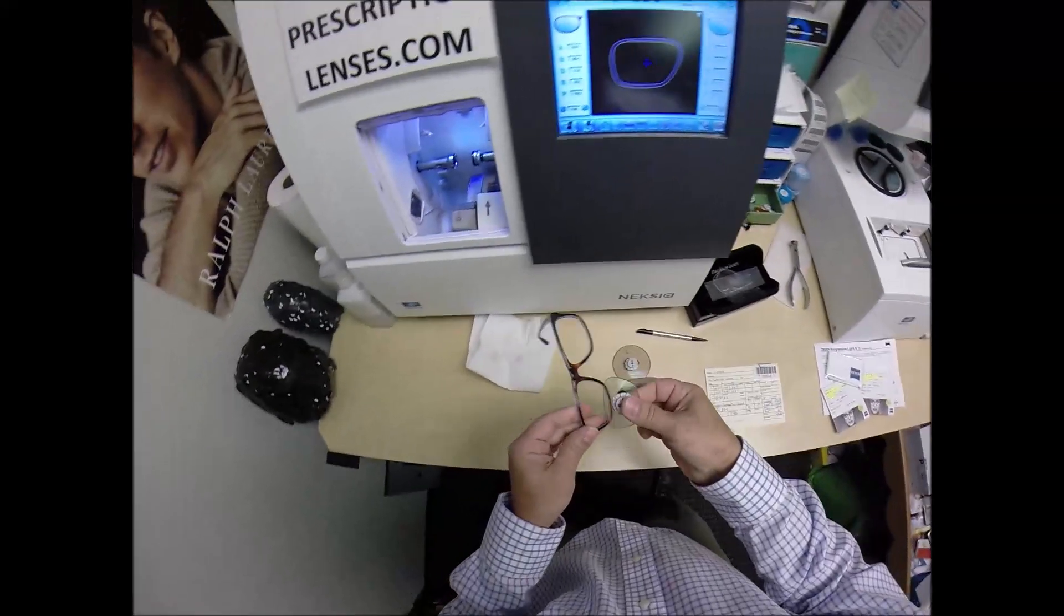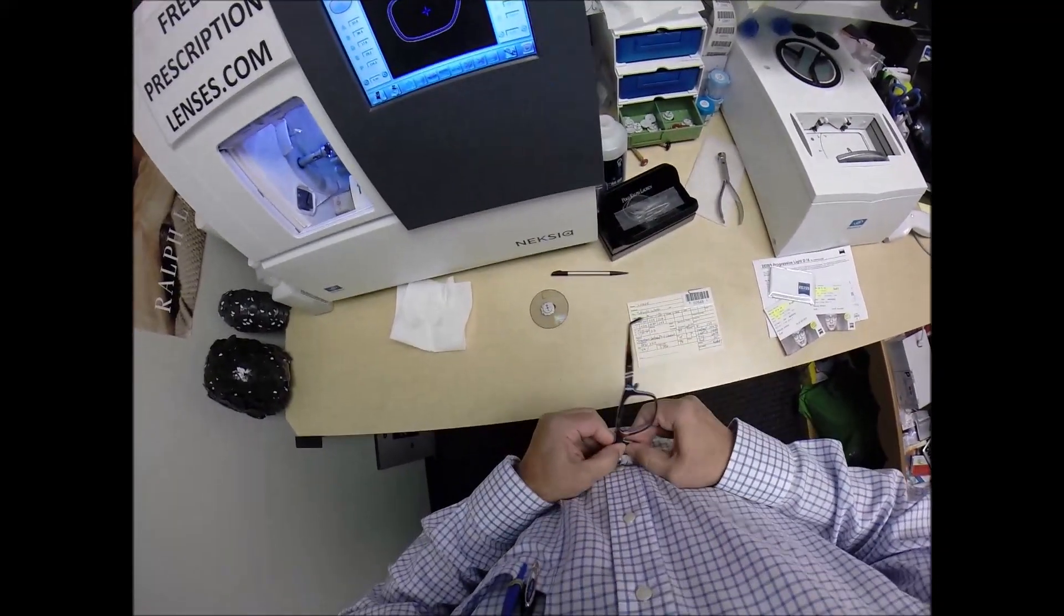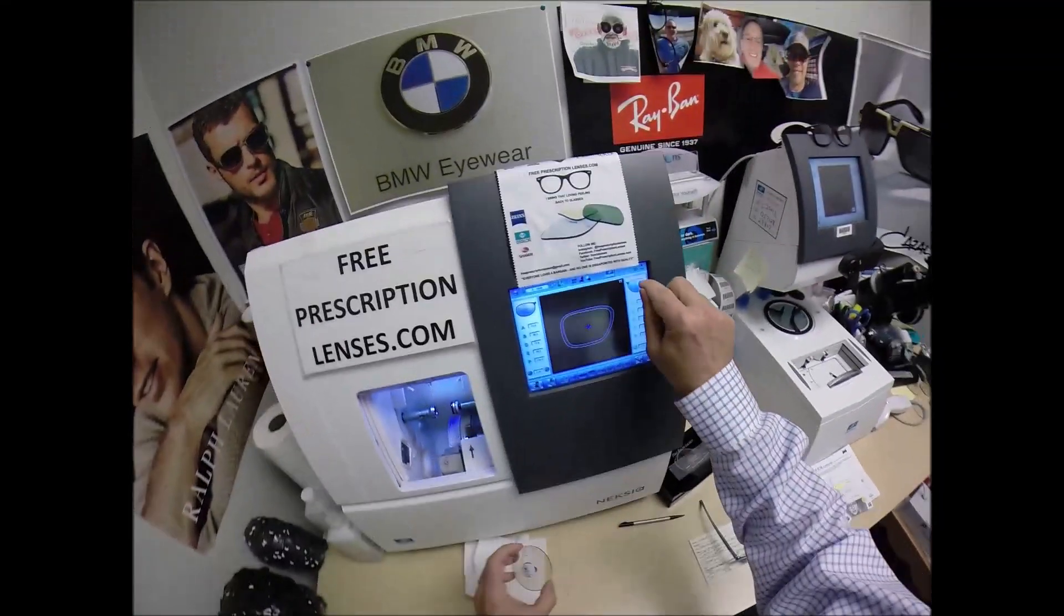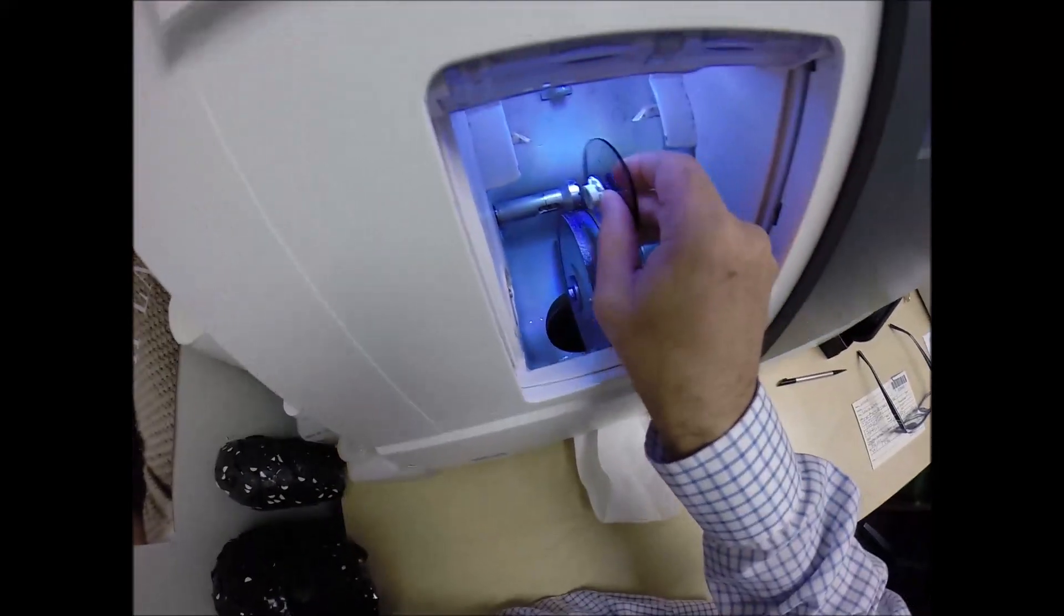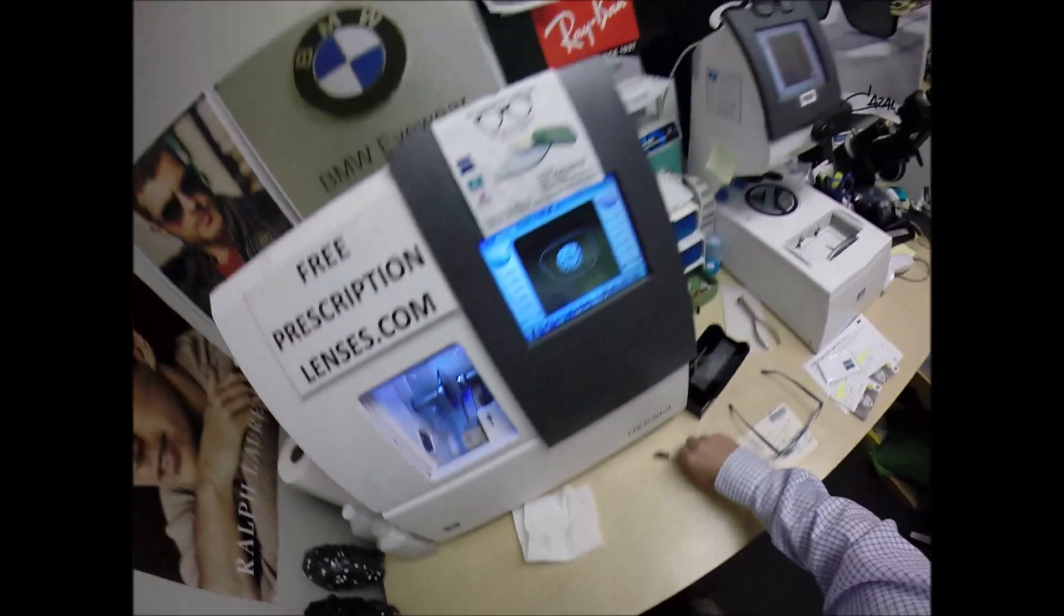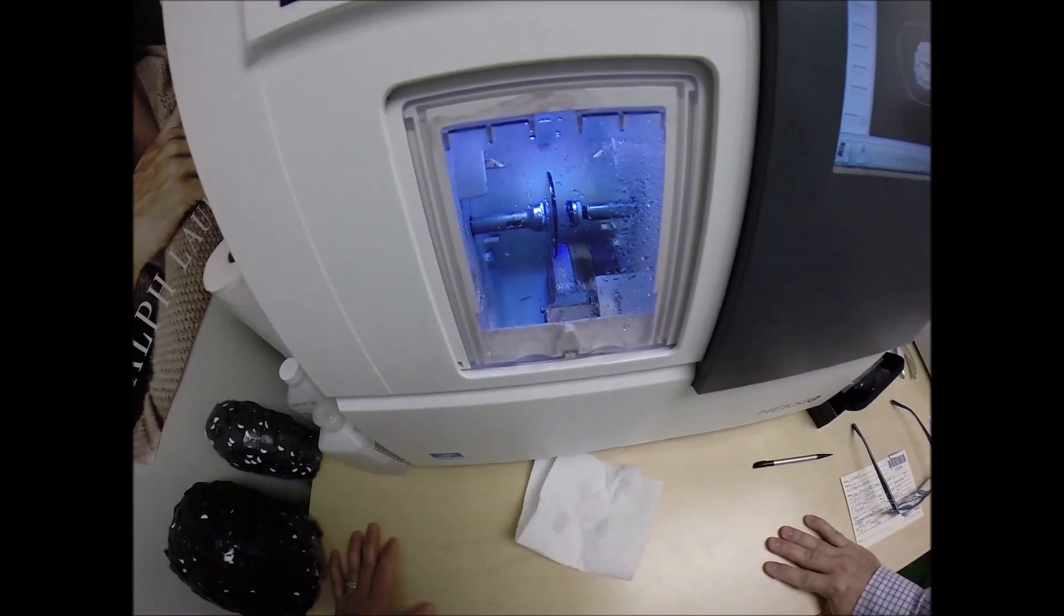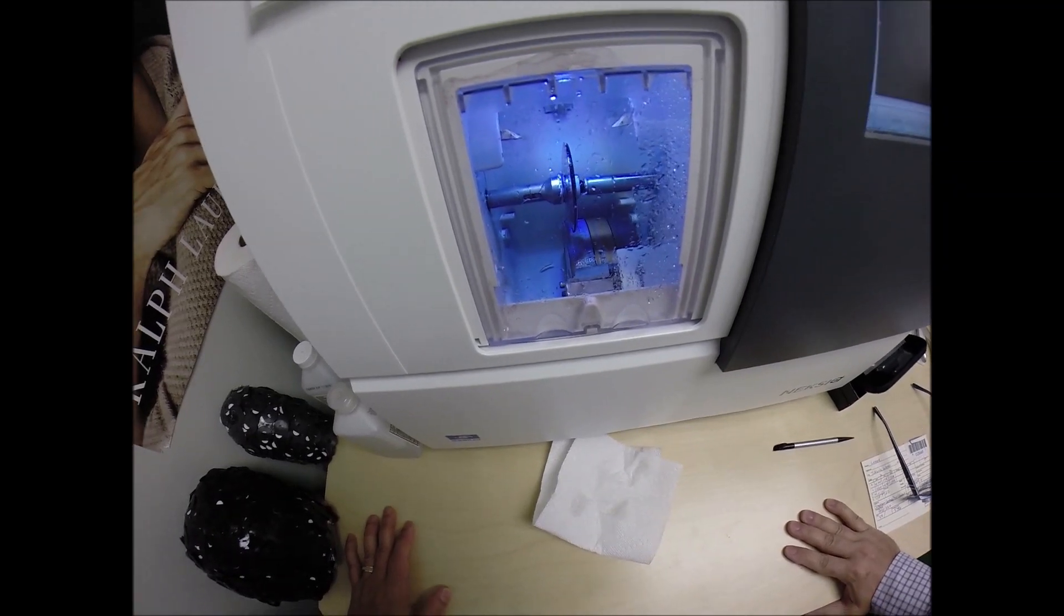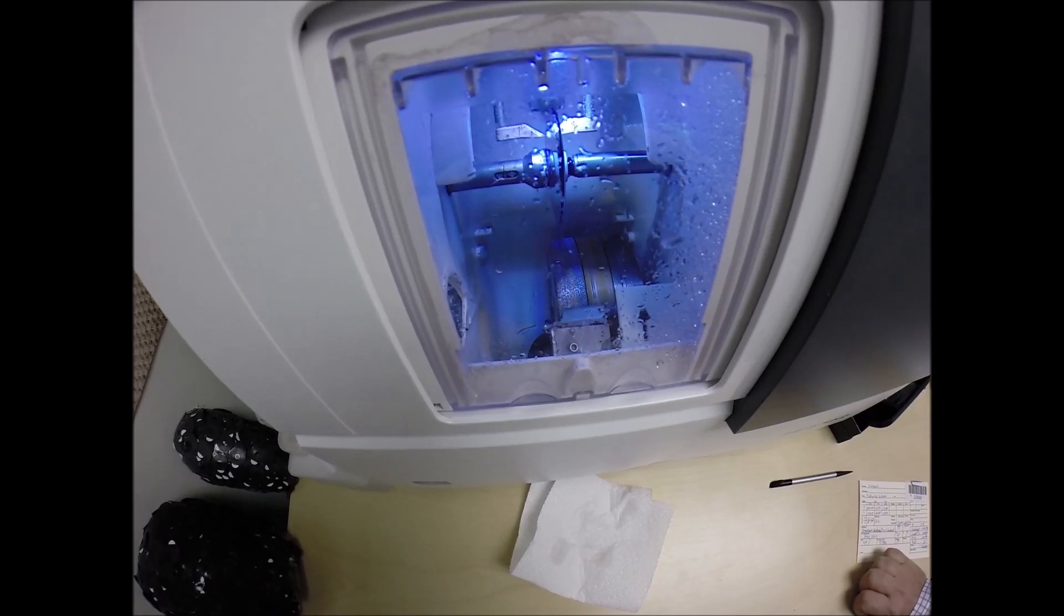So let's come down here. We're going to see if the lens fits first time around. We're going to tuck it in at the outside corner, press down at the nose, it snaps right in. Let's go ahead and start cutting the left lens. Flip that over to L, place the magnet into the Chuck, the Charles, the Chucky Baby, or today I'm calling it the Lonnie. Hit the green start button. Just like before the door closes, the clamp shuts.